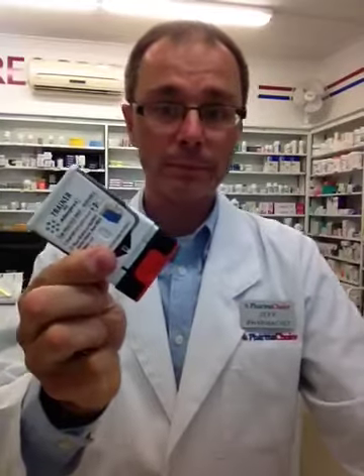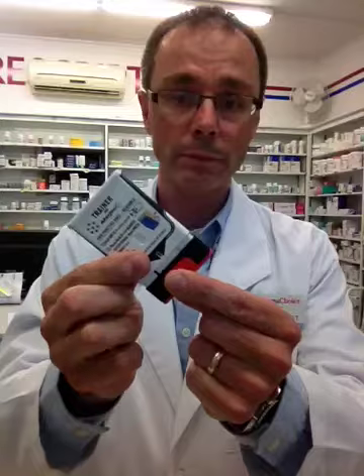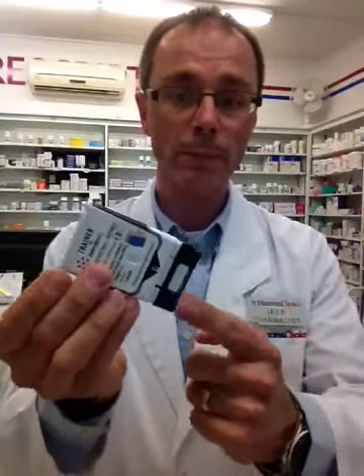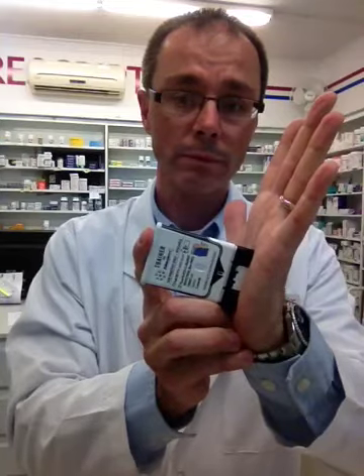This trainer contains no needle or drug. This is what it would sound like: 'If you are ready to use, pull off red safety guard. To inject, place black end against outer thigh. Then press firmly and hold in place for five, four, three, two, one. Injection complete.' Now, I just used my hand — you would actually put it against the outer thigh, not in someone's hand.